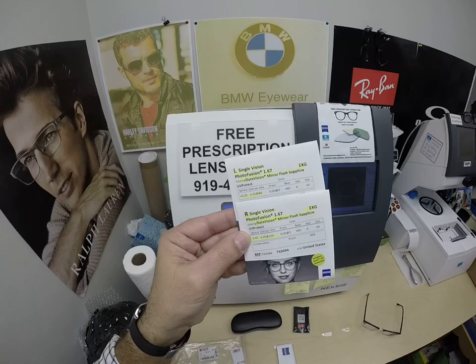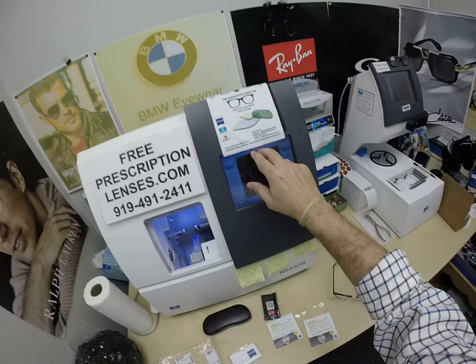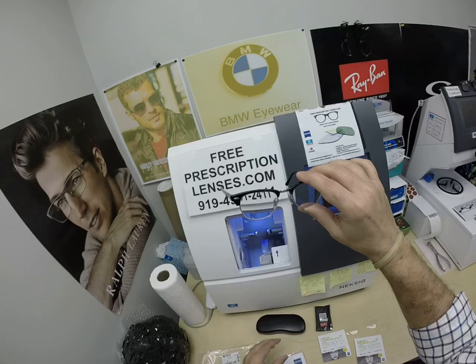He's got crazy stigs — higher than average astigmatism. Anytime it goes over two diopters, I call them crazy stigs. That's a medical term. He's also going to get the Zeiss cleaning cloth, my premium microfiber cloth, and instructions on how to care for his frame and lenses so they will last two years, four years, and instructions on how to clean all three cleaning cloths and the case so it too will last for years.